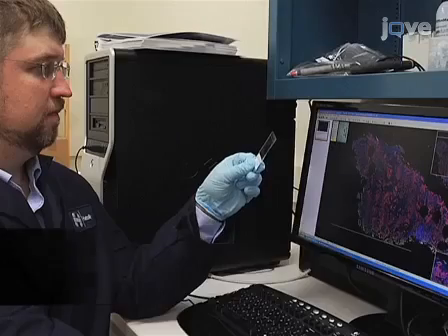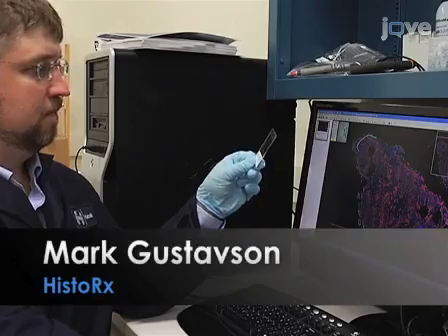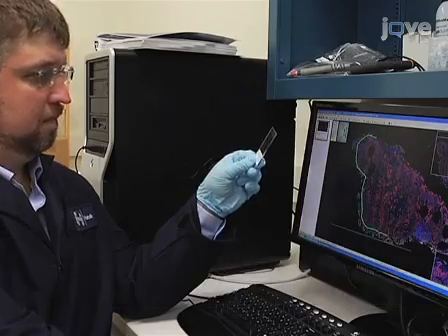Demonstrating these procedures is Mark Gustavson, a Director of Operations at the HistoRx laboratory.